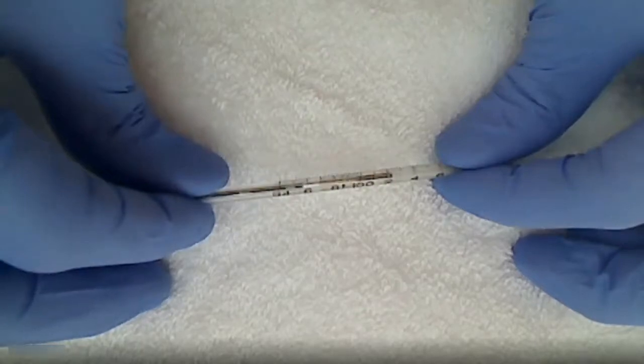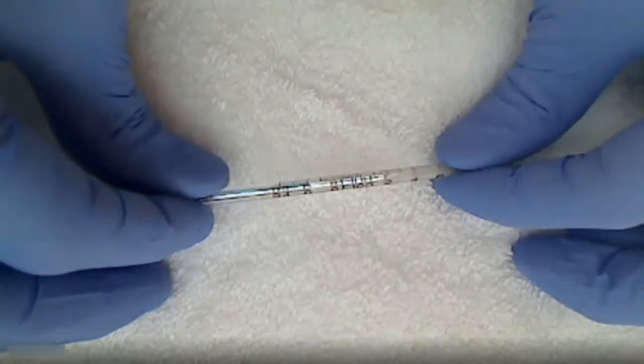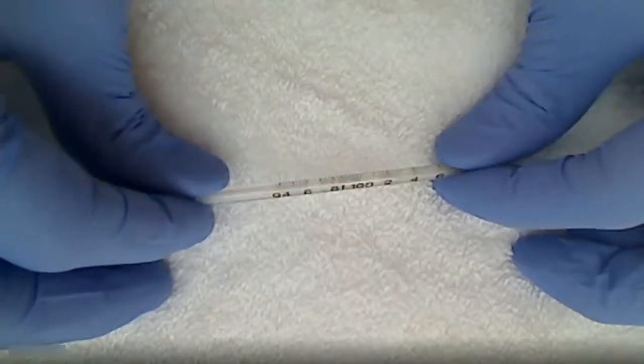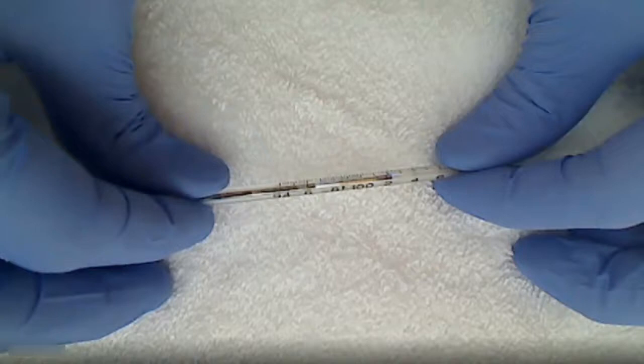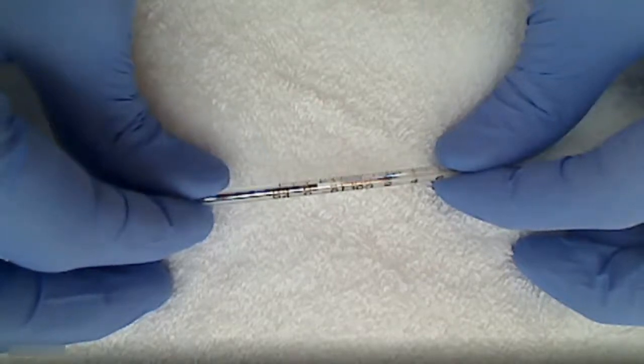Right there. If I move it just a little bit it's gone, it's back, it's gone, it's back. So you just kind of rotate it just a little bit until you get that silver line. All right, let's look at another one.